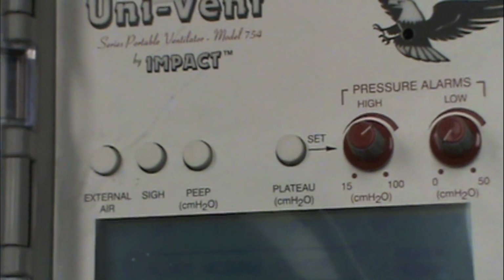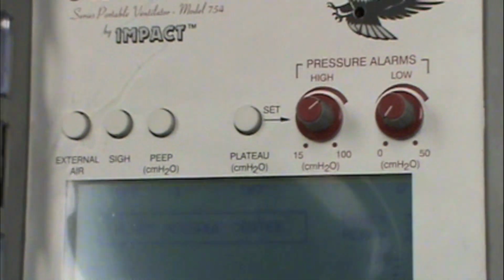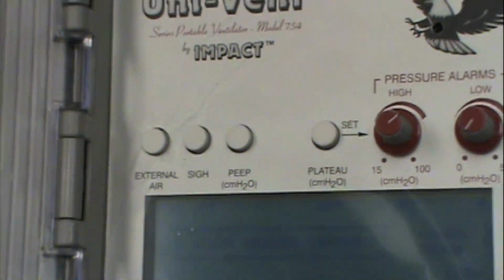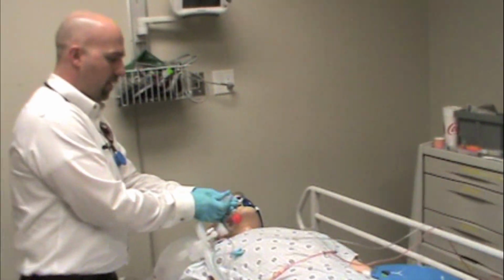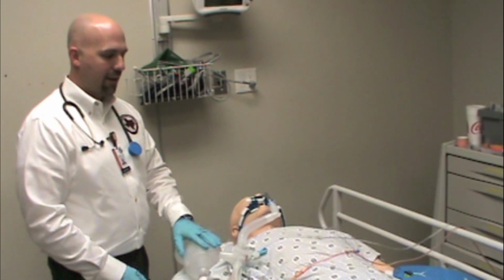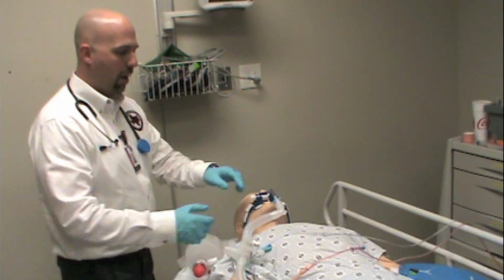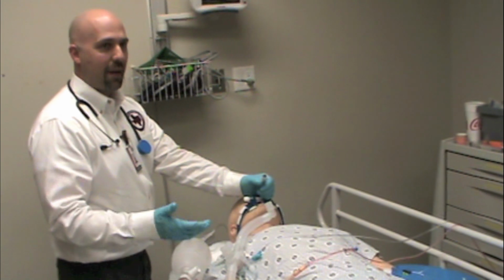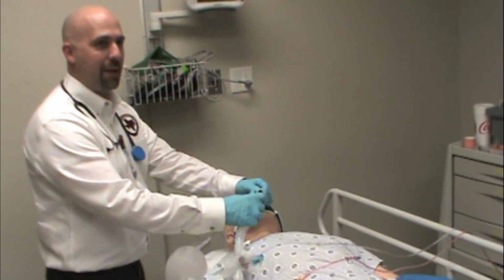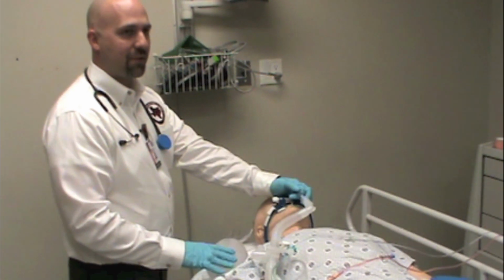And one common mistake that people make is they'll set PEEP on the ventilator and then they'll break the circuit several times over. So if I've had the patient attached, I'm going to move here to a real lung, so let me have some alarms here for a minute. I move the patient over to here, and I decide that I want a bag, or I want a suction, or I want to do anything that's going to cause me to have to break the circuit. Every time I break the circuit, I lose all the PEEP we just worked to get. So sometimes it'll take 15 or 20 minutes to recover the amount of PEEP that you gained every time you break the circuit. That's why it's always valuable to have inline suction sets.